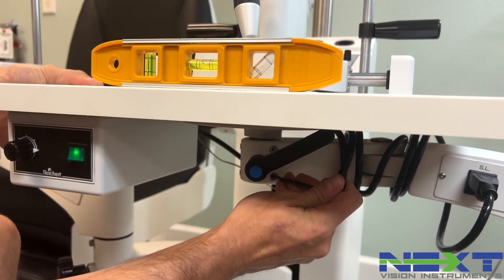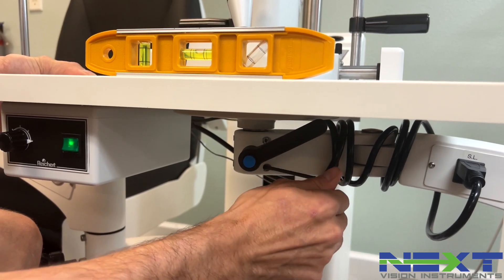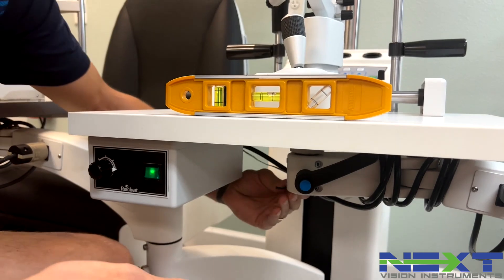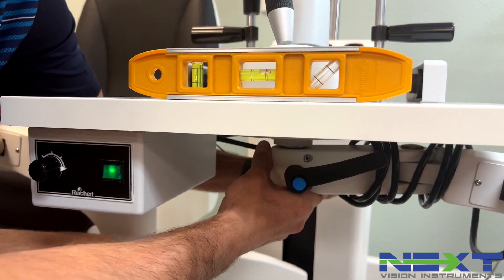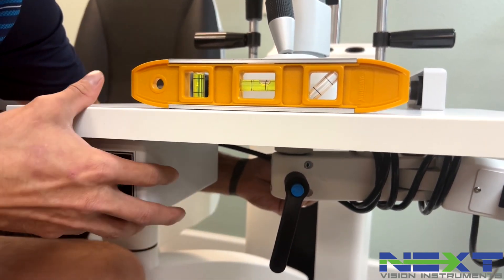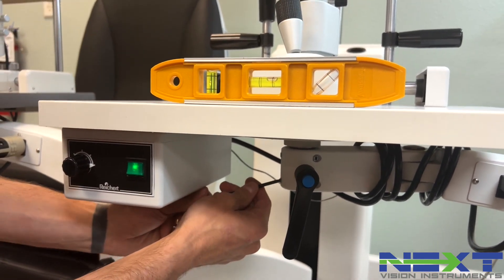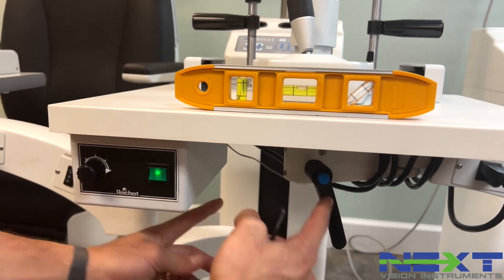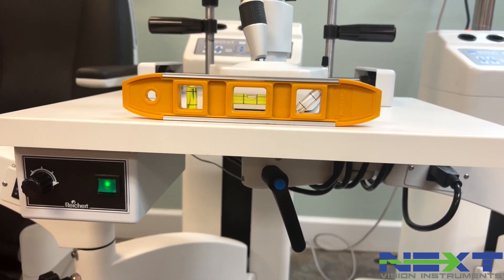All you do is hold your slit lamp level and start with one of the lower screws on the side that you need the most adjustment on. There are six screws on that arm that hold the slit lamp pin level. I only have three screws tightened — the three lowers tightened. We're pretty much level there.